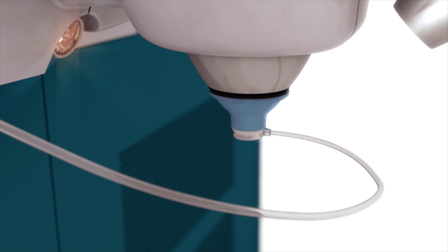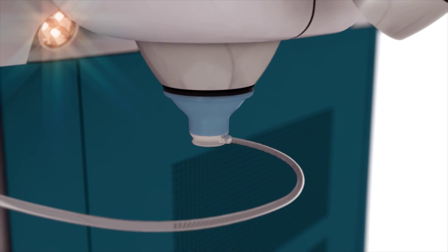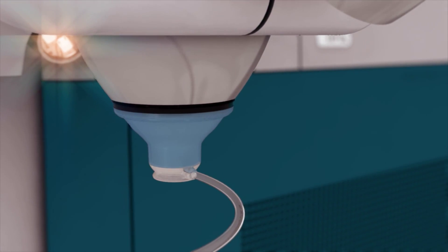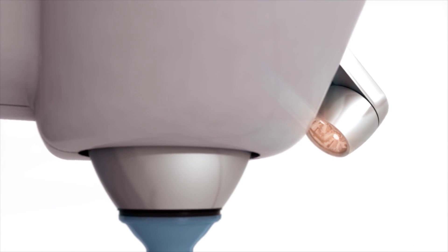The first femtosecond laser cleared for applications in cataract surgery, Alcon's LensX laser is an image-guided surgical breakthrough.